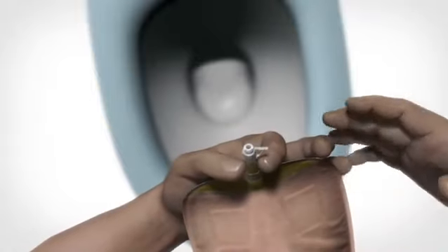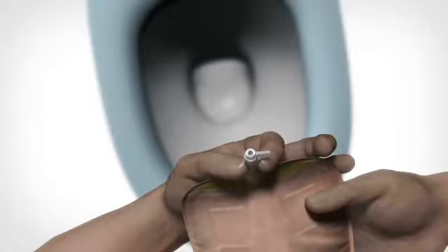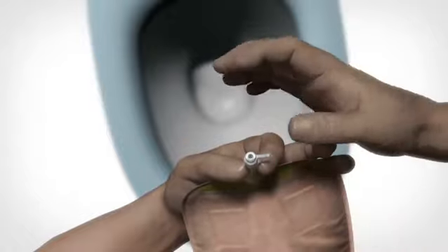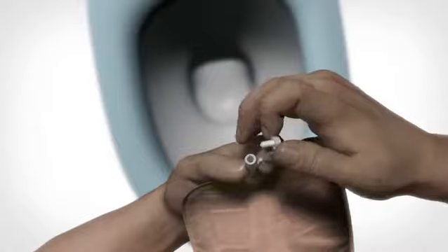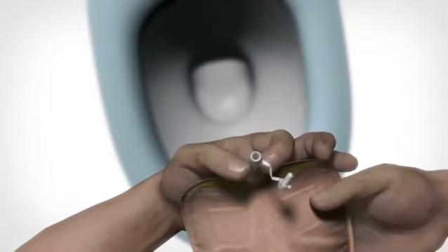Turn the outlet tube upwards. Before the cap is unplugged, first squeeze firmly behind the cap. This is to keep control of the urine flow. Then unplug the cap while keeping the outlet tube squeezed shut between your fingers.